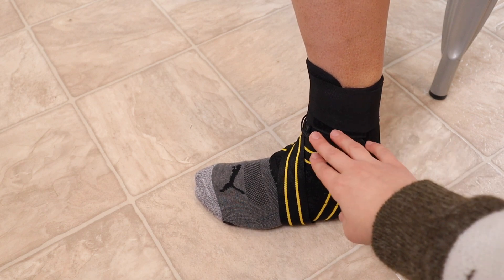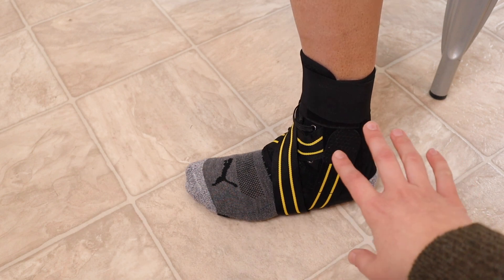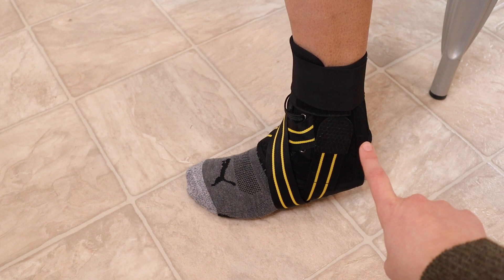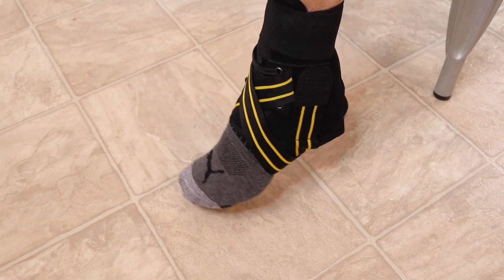You can see this is on there nice and sturdy. I love that you can adjust this depending on your needs. It seems to provide both good ankle support and arch support, which is great. Overall, this seems to have great support without sacrificing mobility.